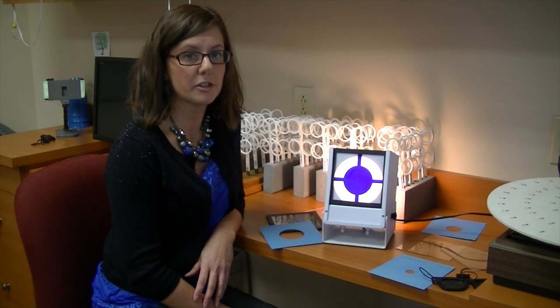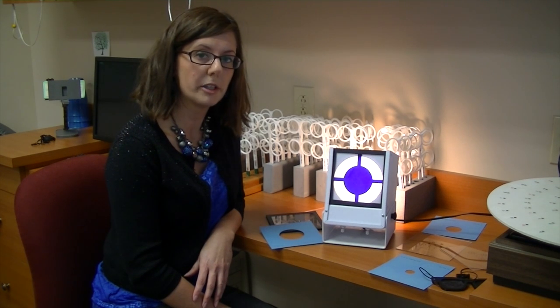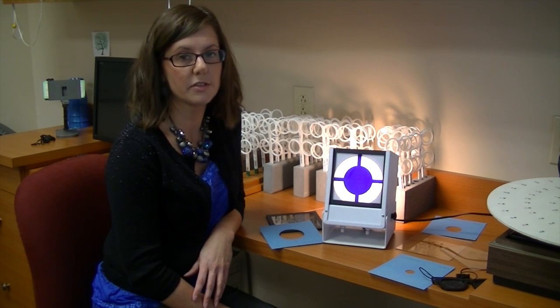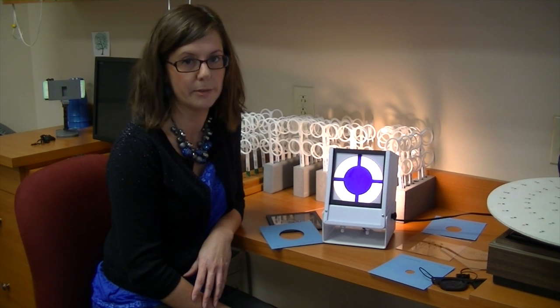We also utilize it for patients who have strabismus, which is an eye turn. Amblyopia is an eye that doesn't see properly or clearly. And we also use it for kids and adults who have binocular vision problems where they ignore or suppress the image from one eye.